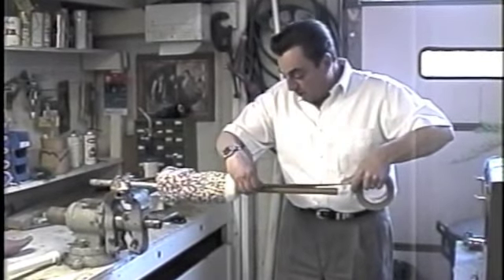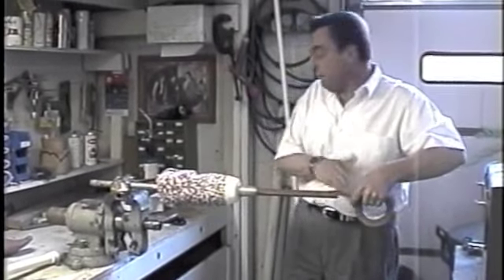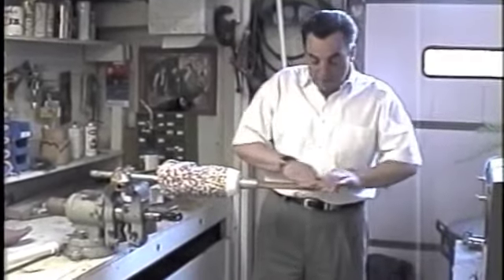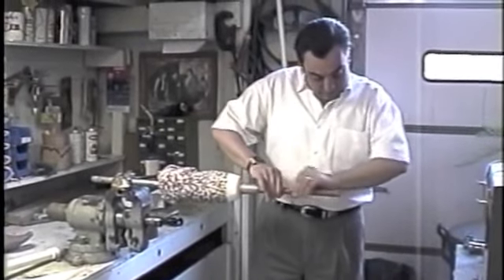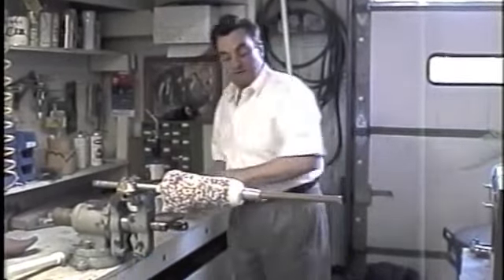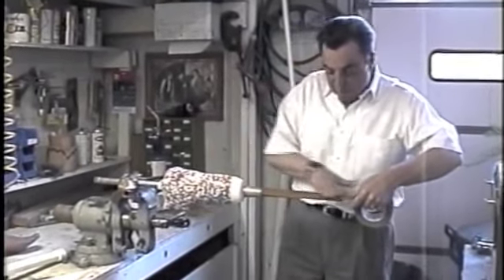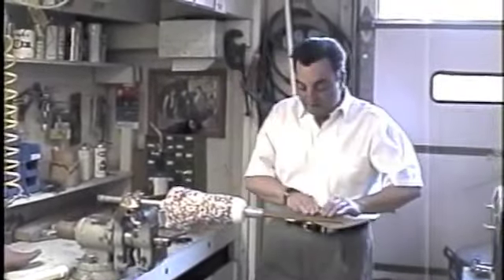After you make your endoflex prosthesis, if the pylon fits snugly in the foot clamp and it looks tight on the outer rim, you want to reduce by one layer — that will reduce the dimension of the pylon just enough to make it fit more effectively.